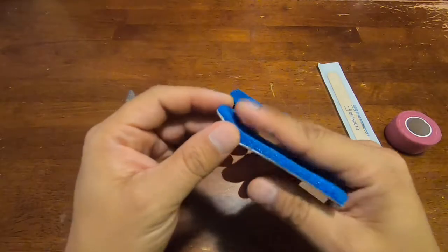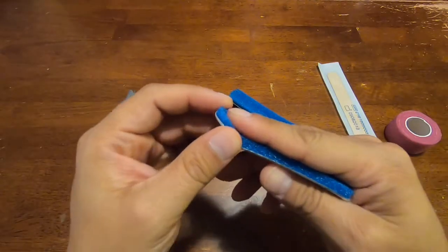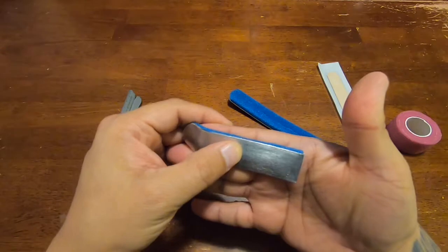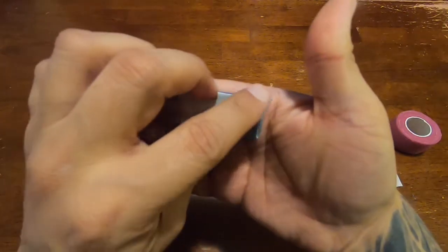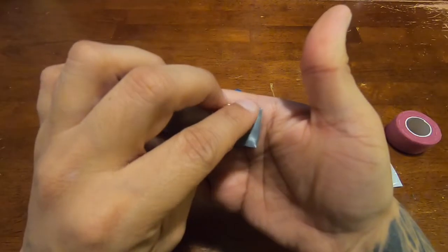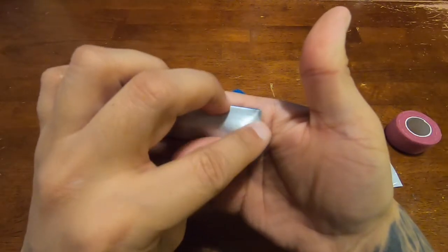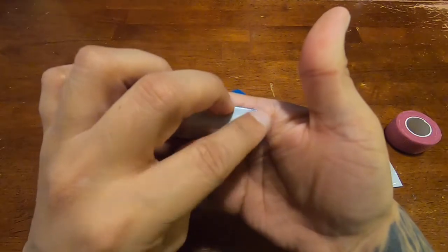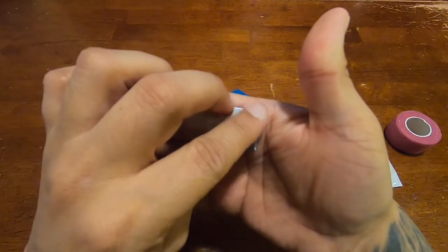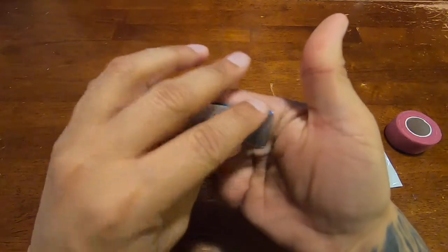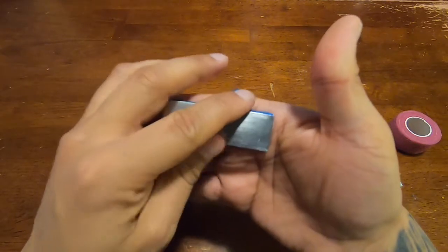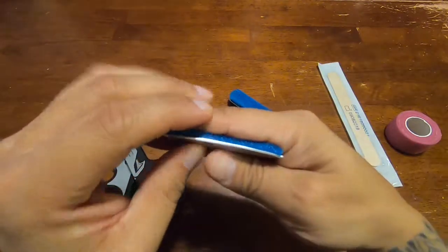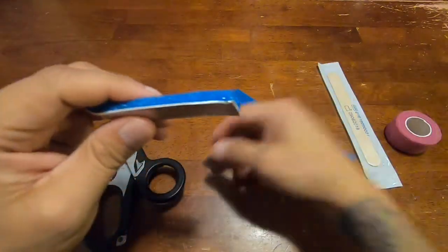So this, for example, let's say I've already cut this and I just need to adjust the size. If you look, you see this jagged edge. This is a piece I've already cut, but you see this jagged edge, and more likely if I don't take care of it or clean it up, it'll probably dig into my skin, cut my skin, just cause further injury.